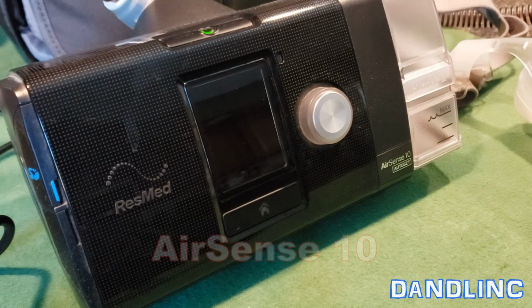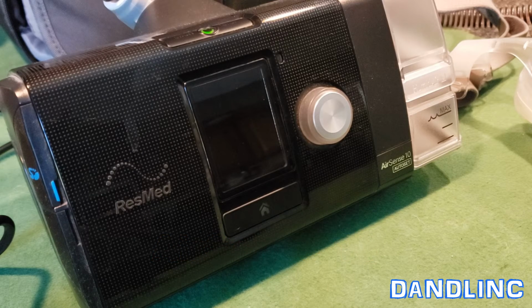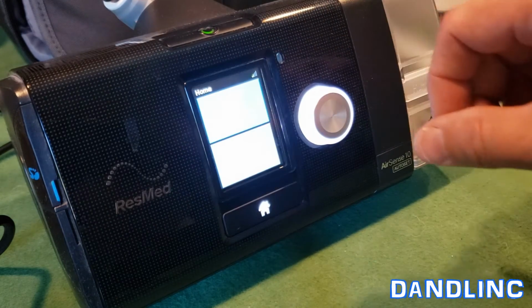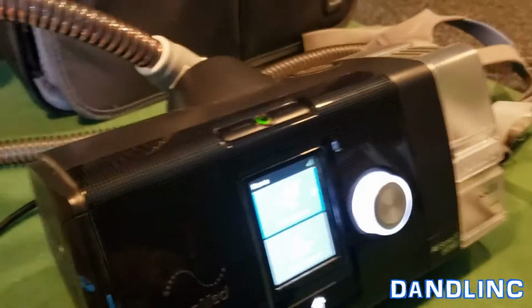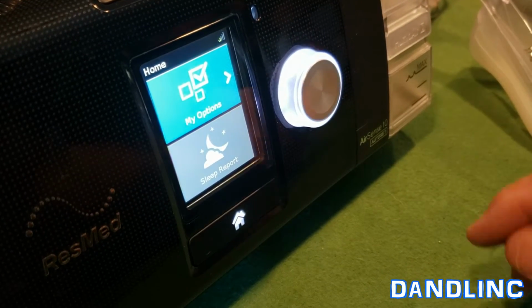You're looking at an AirSense 10 CPAP machine by ResMed, and today I'm going to show you how simple it is to tell the total hours on the unit. From the home screen like this, sorry for the glare, here's a better angle. The top screen is blue, the bottom is sort of a silver.